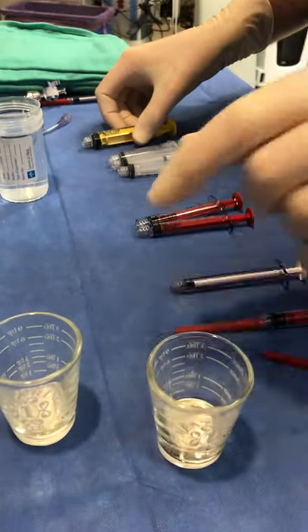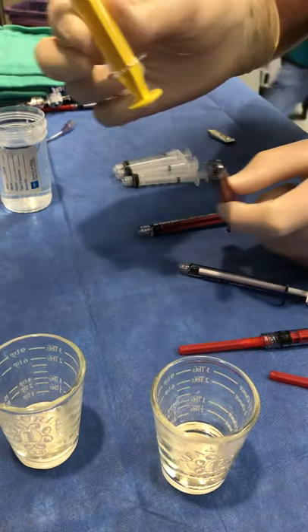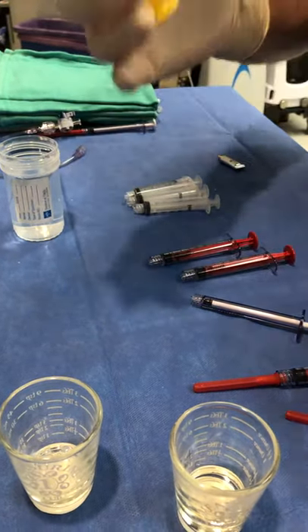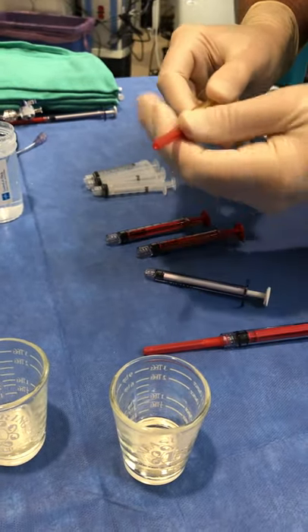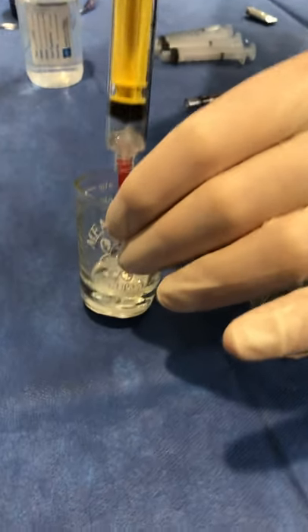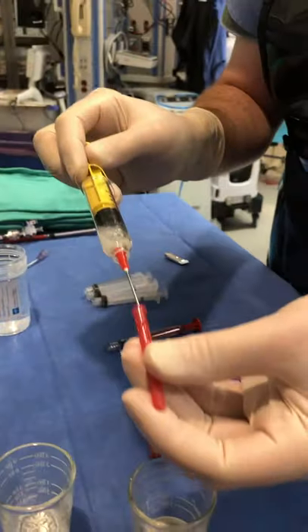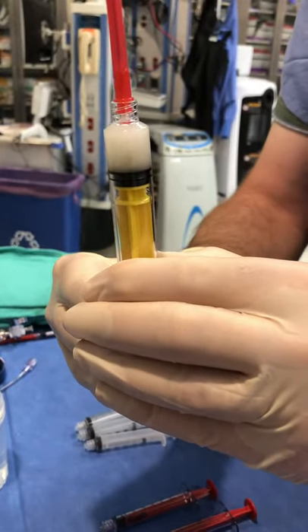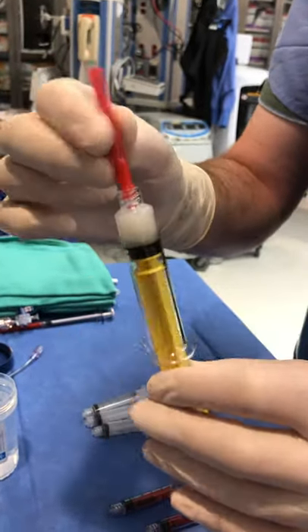We only have three cc's, so you could use a three cc red syringe. If we have more than three cc's to inject, you could use the ten cc, which is also a polycarbonate. We'll just use that. New needle comes off and you just fill it up — take pretty much everything. You will recap it when you flush it because you don't want to inject this into anybody's eyes or on anyone. It would be clear if it were actual glue. And that's ready.